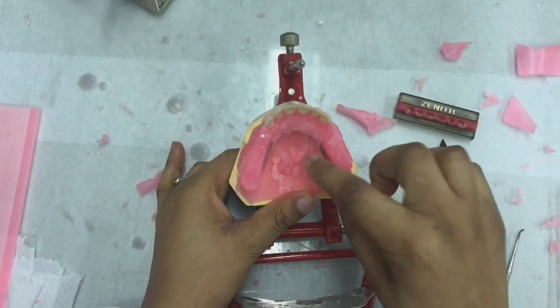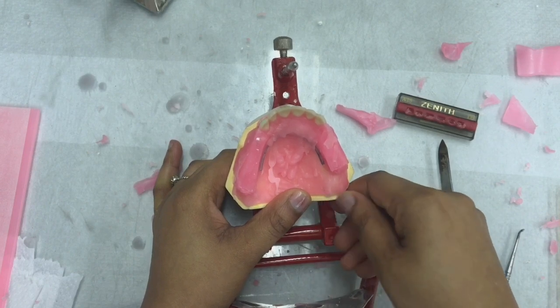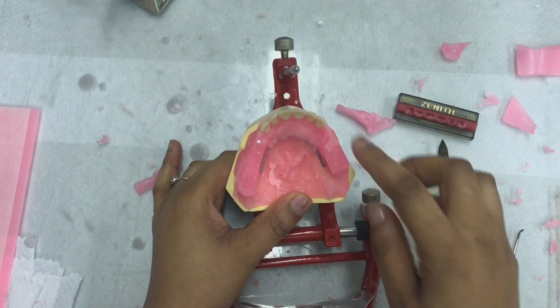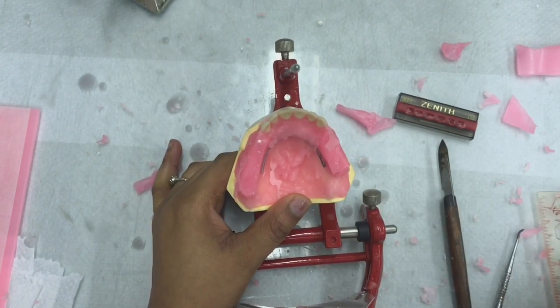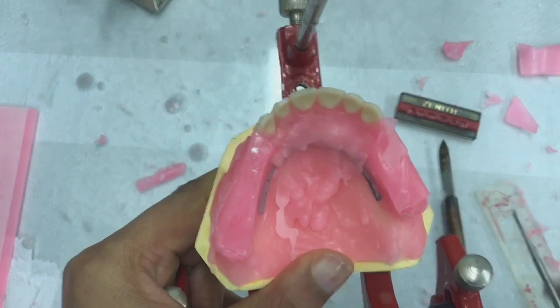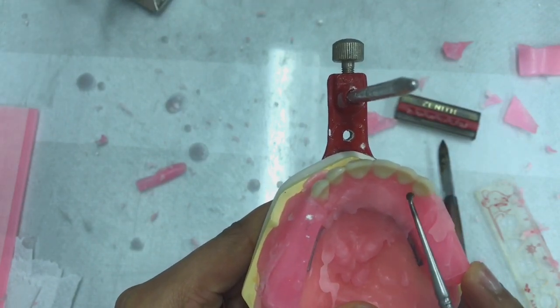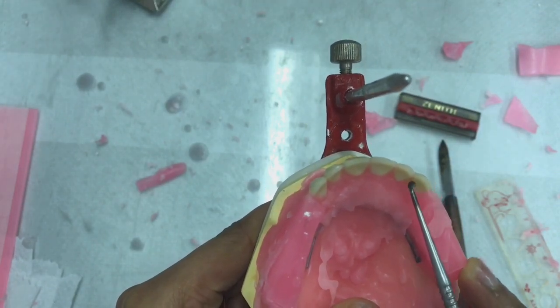I'm going to explain to you how we are going to set up the teeth and what guides we are going to use in positioning the teeth. So the first thing that I would like you to identify on the canine tooth is the cingulum. All right, so everybody should know where you find the cingulum.